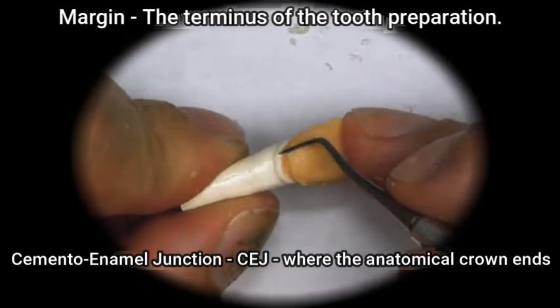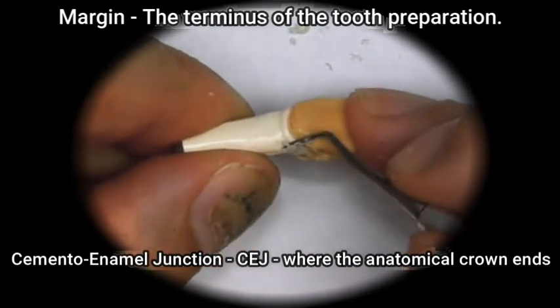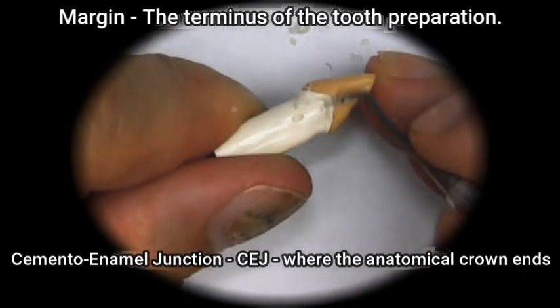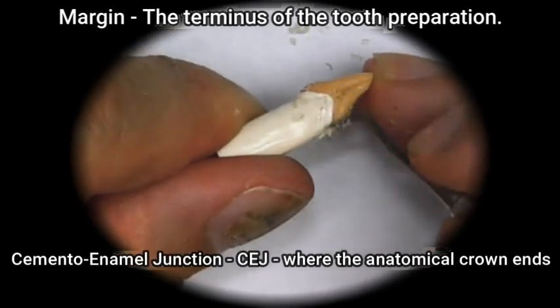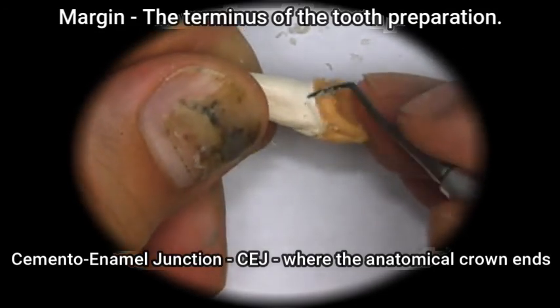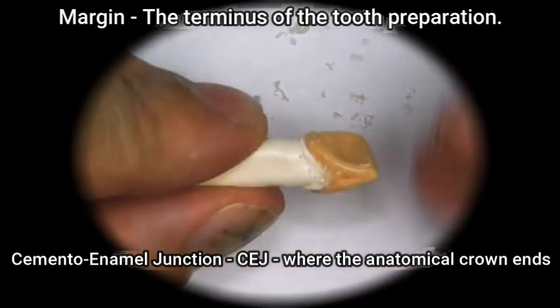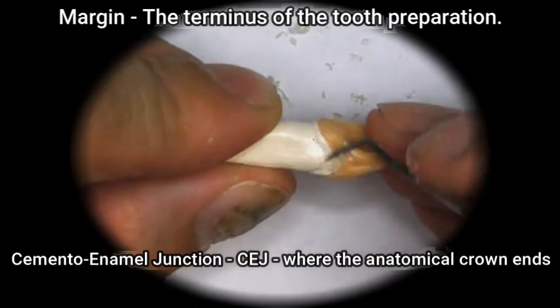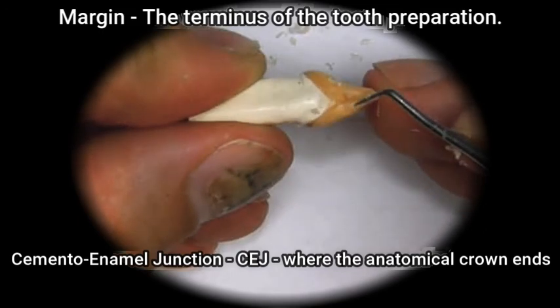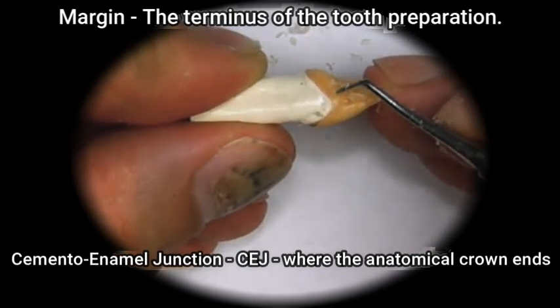So now we're going to carve this down to the same level as the die. And that is the level we have to stick to when we add to these defects in the wax.